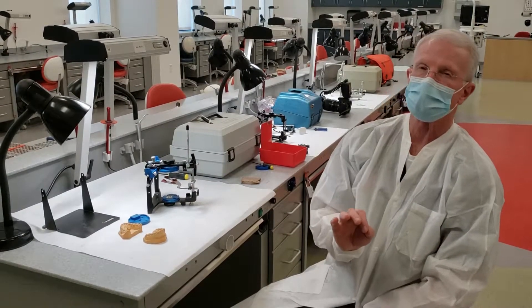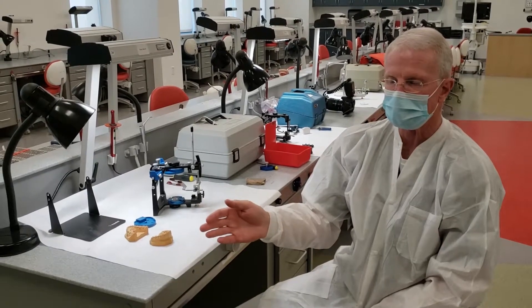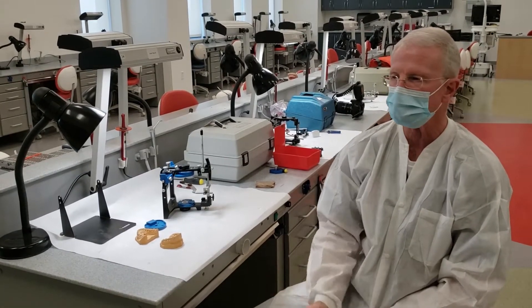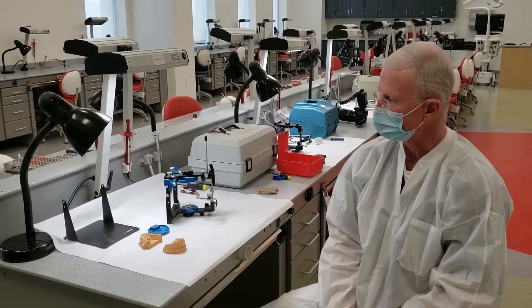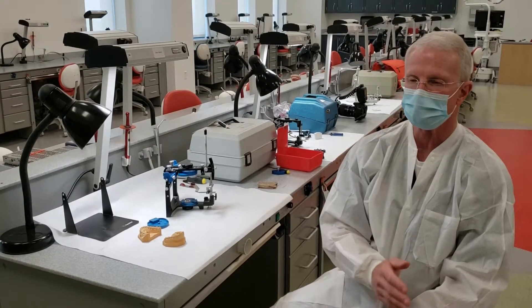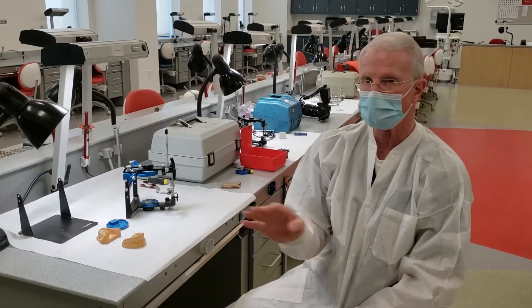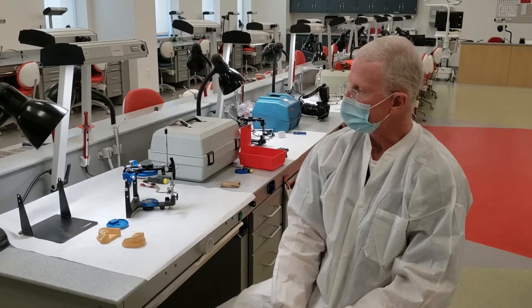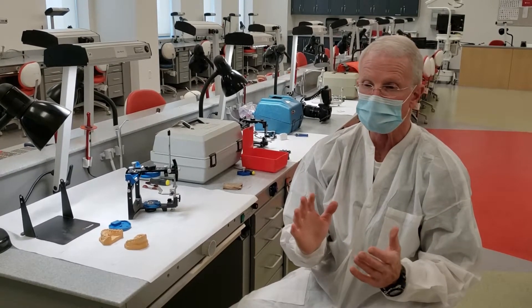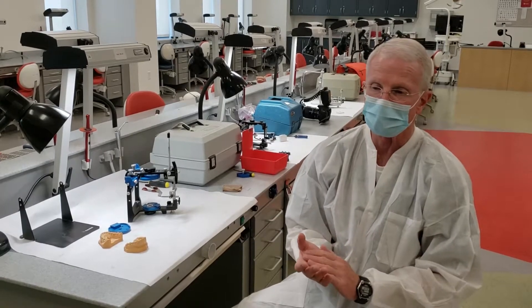There are a couple of very slight but very important variations from what Dr. Lauder teaches. His method of mounting casts has a very beautiful look — great for presenting to patients and colleagues, smoothed up nicely and beautiful. The method I'm going to show you is more what you would use for everyday crown and bridge work, cases that are going to go to the laboratory to have a prosthesis fabricated. So we avoid using any plaster to fill in around the edges. Plaster is nice because it's less expensive than mounting stone and can fill in irregularities to make a nice-looking mounting.